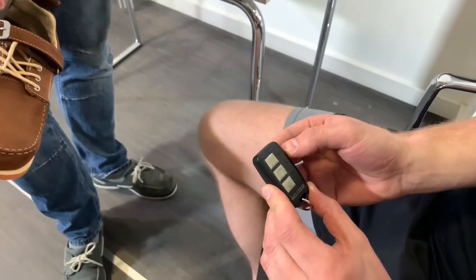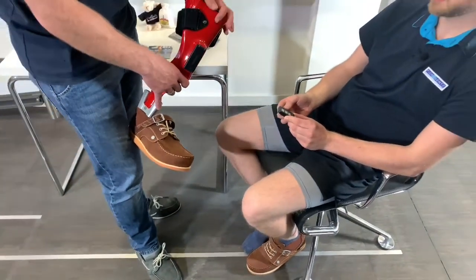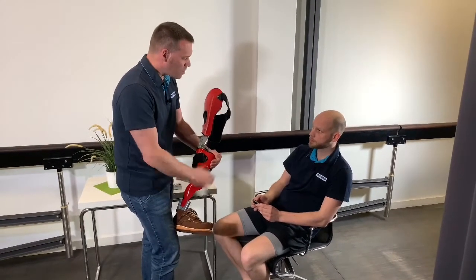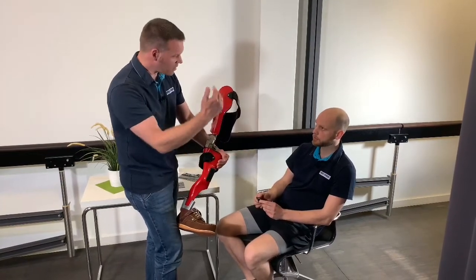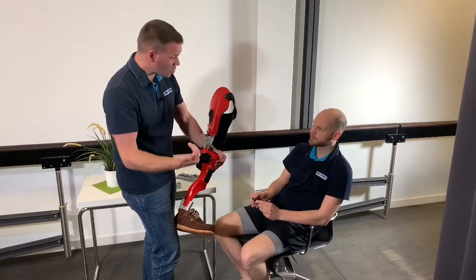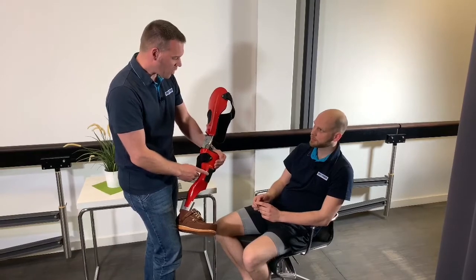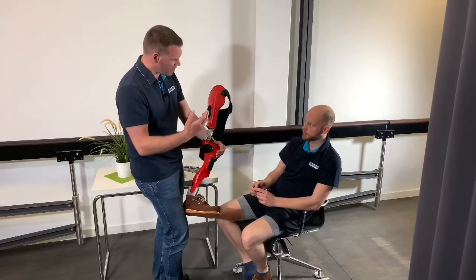Press Auto. Now the LED light is lighting up green. What does that mean? As long as this LED is green, the battery is full enough to run for a very long time. When the battery status decreases, the color of this LED changes — it will first turn yellow, and later red. And if the battery is so empty that the system is about to stop its service, the controller will signal with a beep that you really should charge your battery.